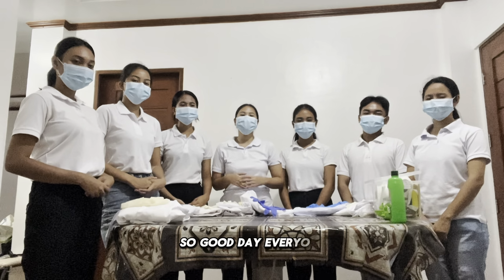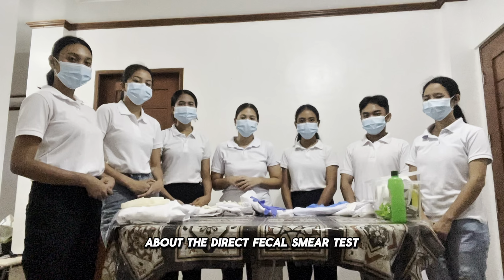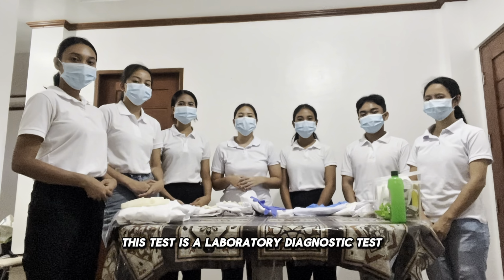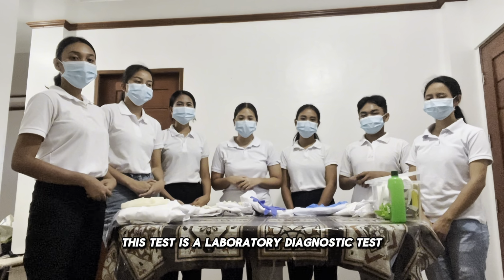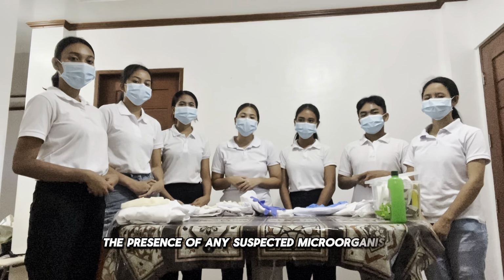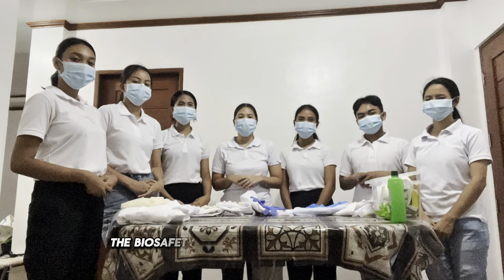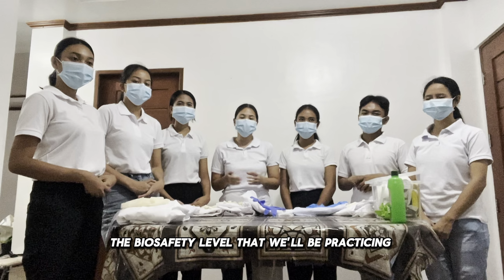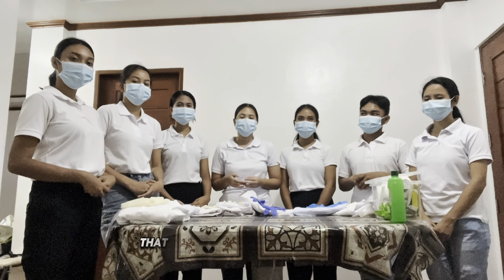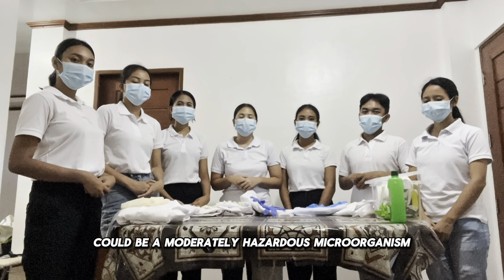So good day everyone, today we will be presenting our return demonstration about the direct fecal smear test, also known as the wet mount test. This test is a laboratory diagnostic test wherein we are going to detect the presence of any suspected microorganism on the stool sample. In this test, the biosafety level that we'll be practicing is biosafety level 2, since the microorganisms that could be present in the sample could be moderately hazardous microorganisms.